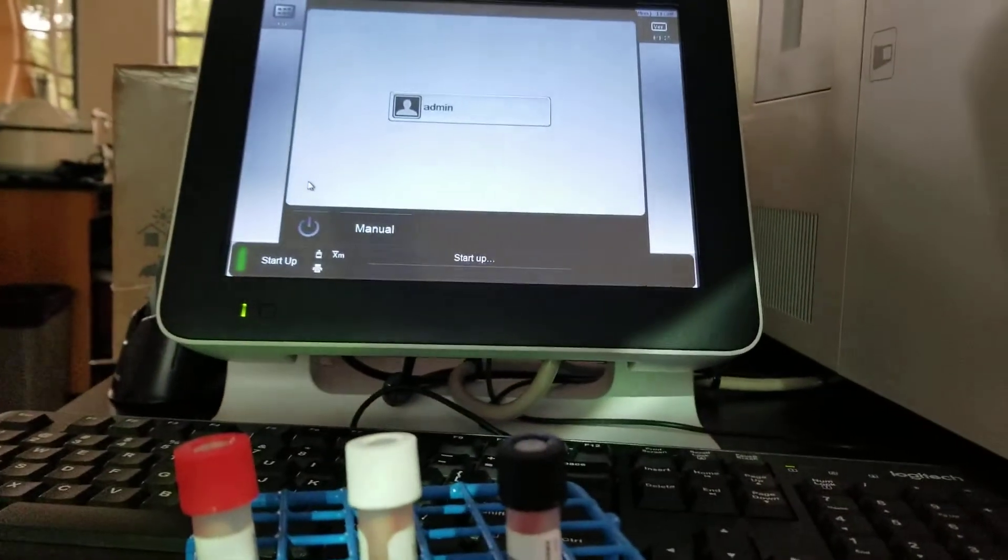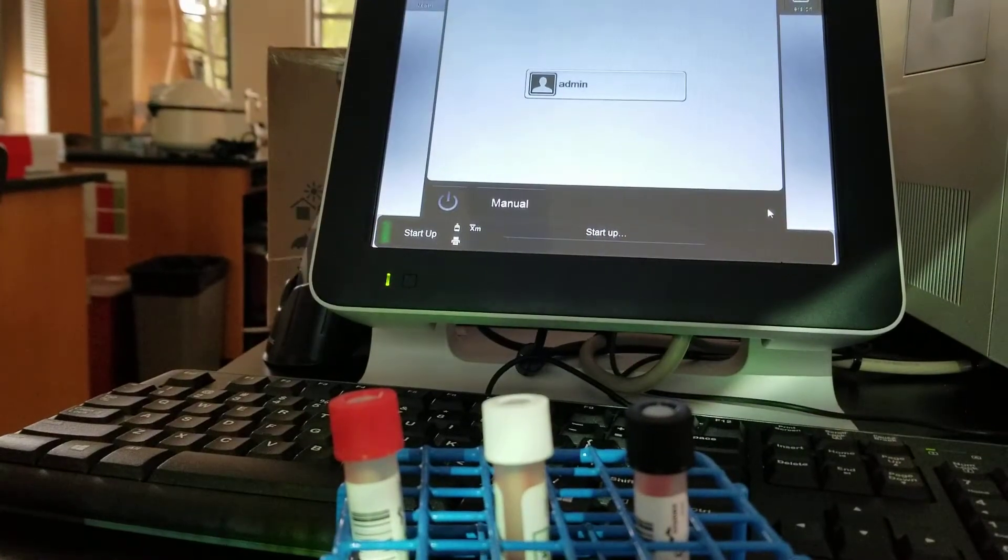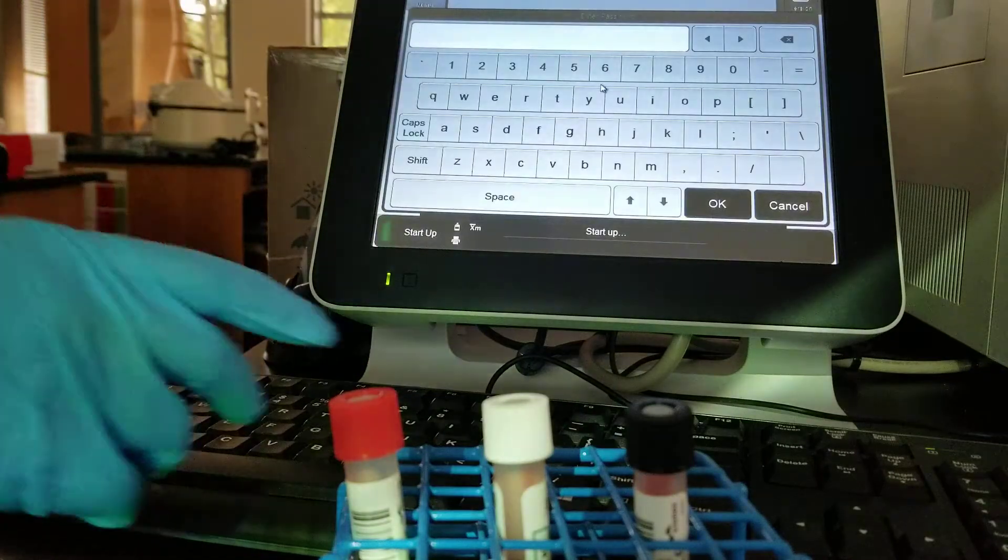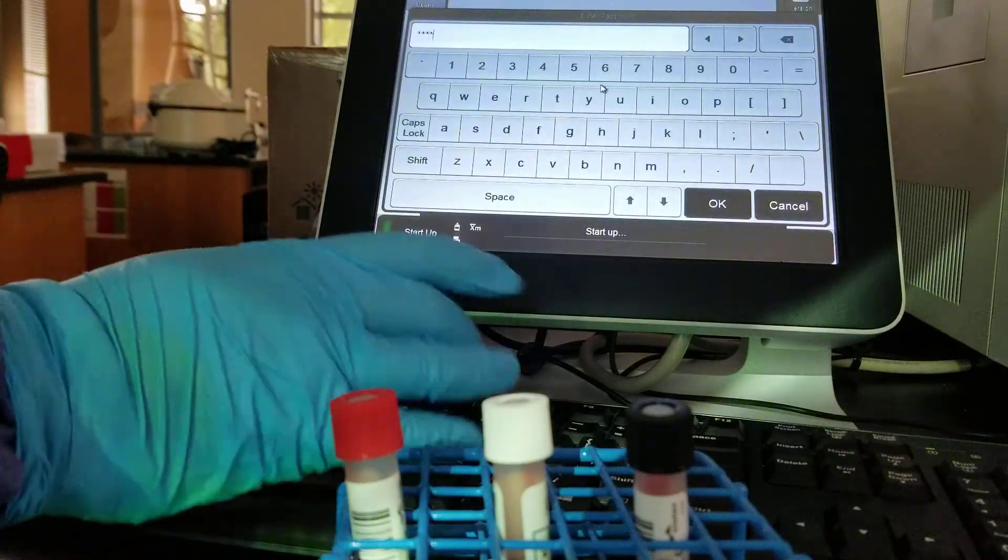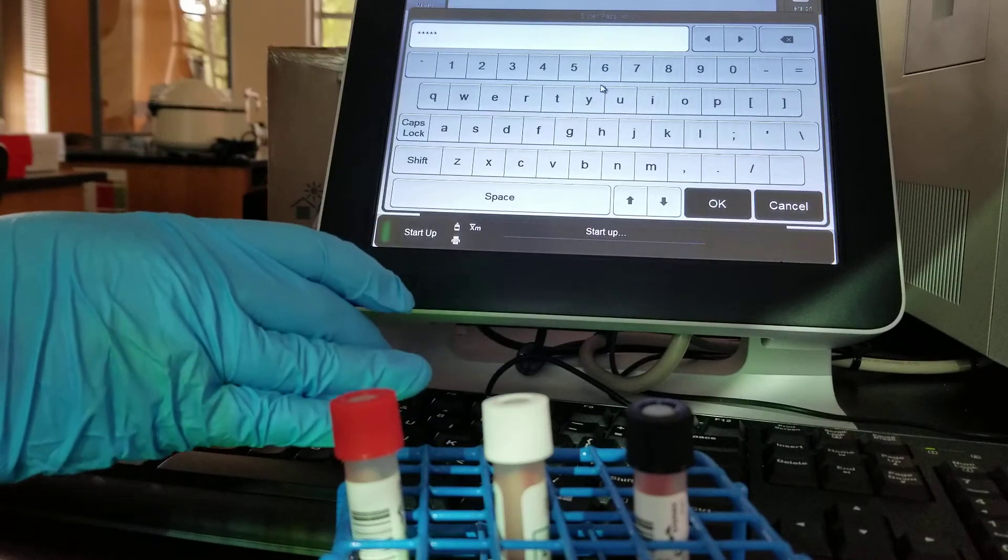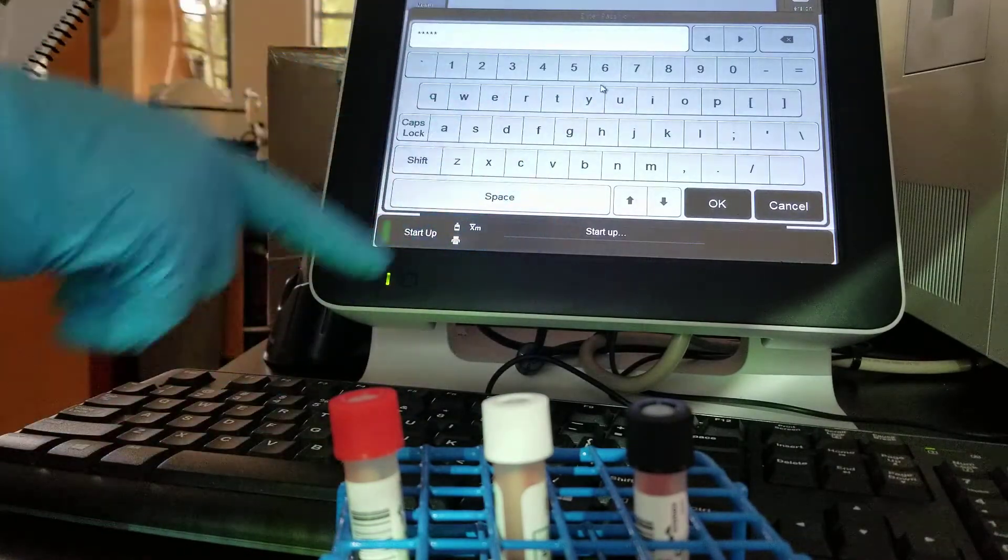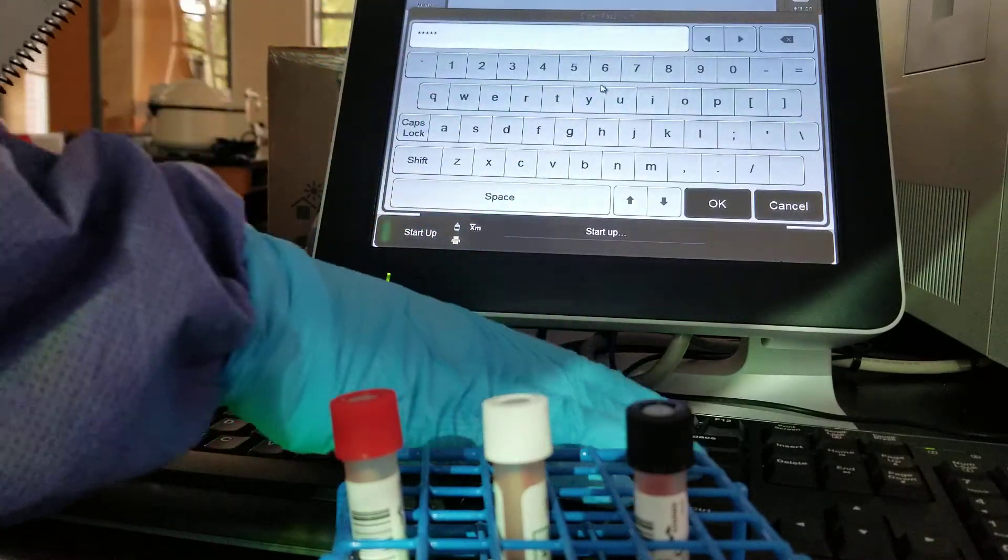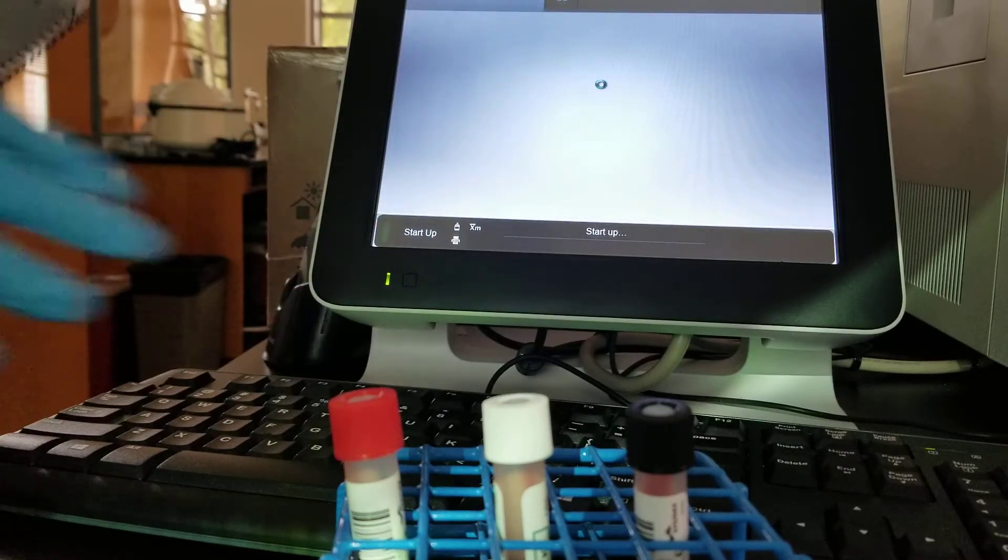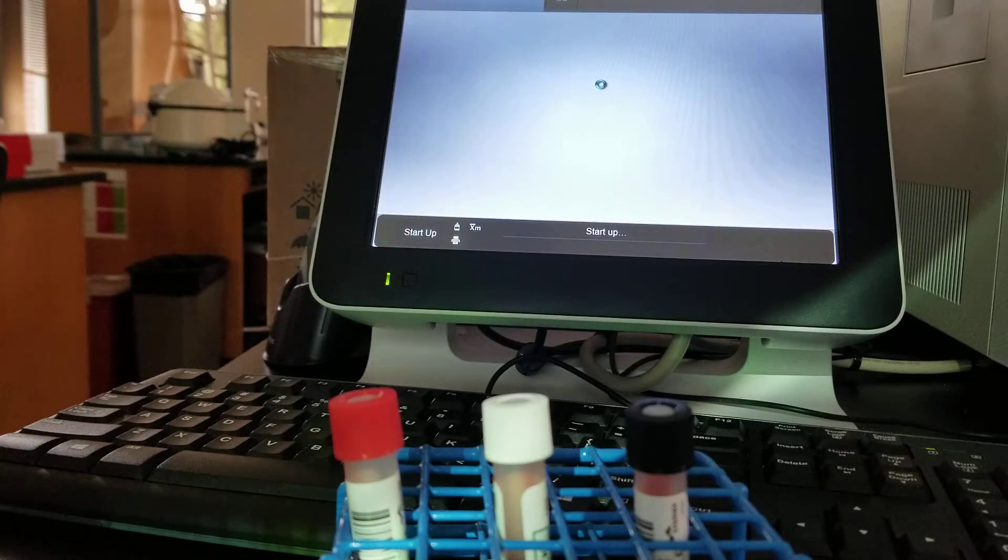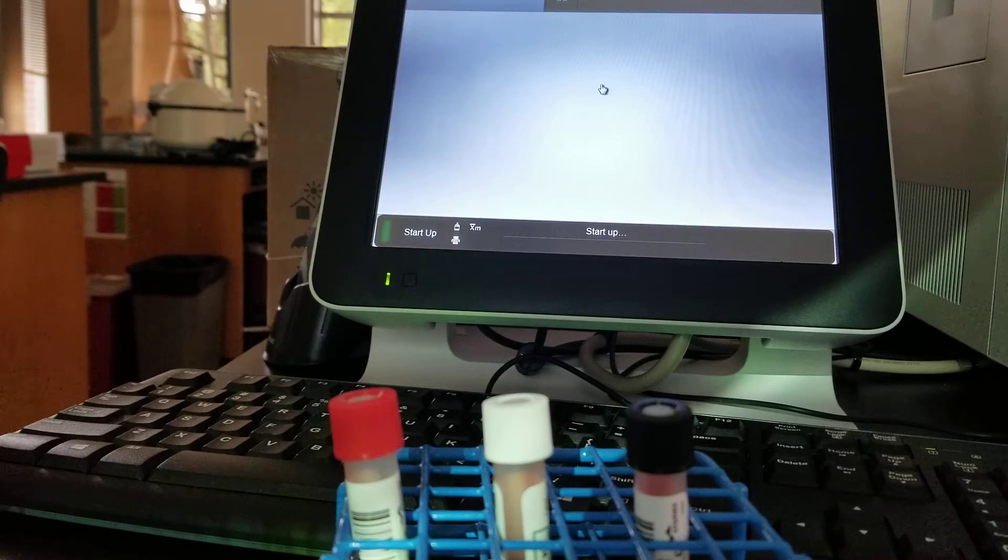I'm not going to give you our sign in, so hold on. When you see this, you're going to press on the administration button. You put in the code. Now you can use the touch screen. You can use the keyboard. Either is fine. Press enter or use the touch screen and it's going to say that we're ready to go.